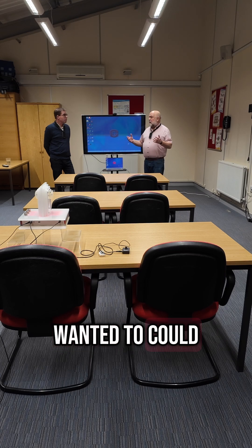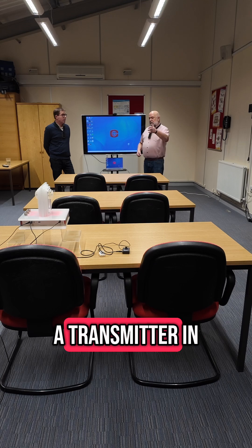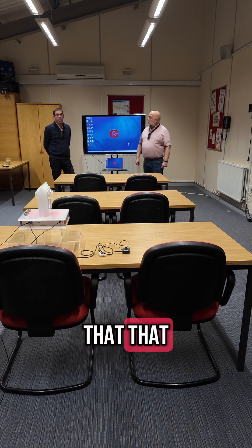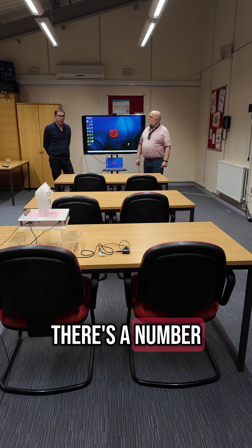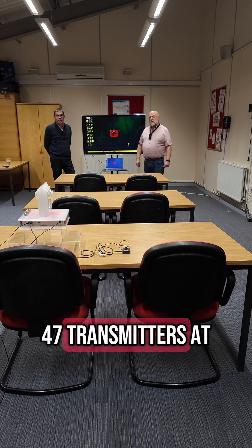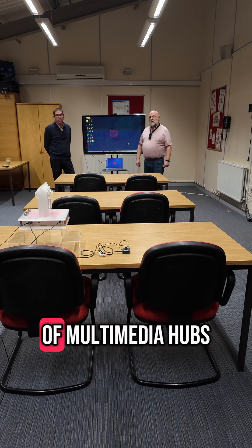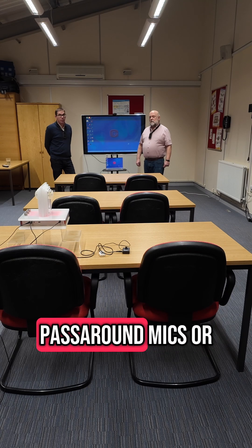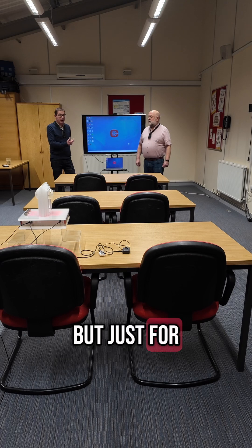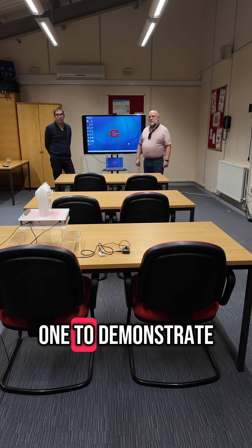And if I wanted to, could I have more transmitters? What about if I had a transmitter in the class for one of the kids to ask me a question? Yes, that's quite common. There are a number of different things you can do — you can have up to about 47 transmitters at the moment, and that could be any combination of multimedia hubs, pass-around mics, or touch screen transmitters. For ease of use, the touch screen is probably the easiest one to demonstrate.